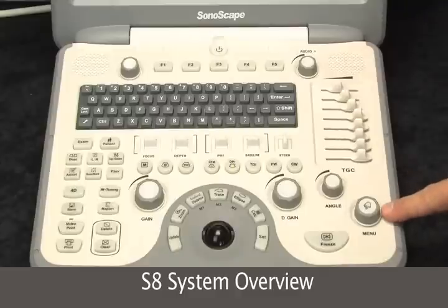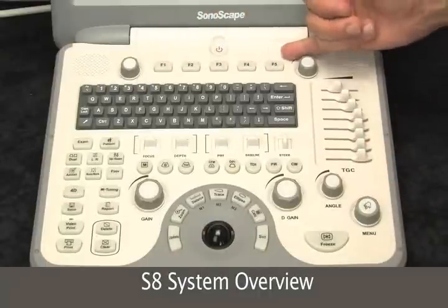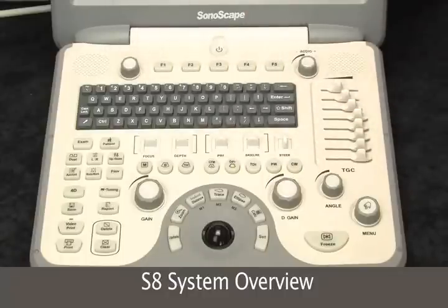There's also a menu key that's dual function — you can press the menu button to select what you have scrolled to with the dial. Soft keys on the top will be associated with keys that change depending on what mode you're in on the bottom of the screen, and some can be configurable.